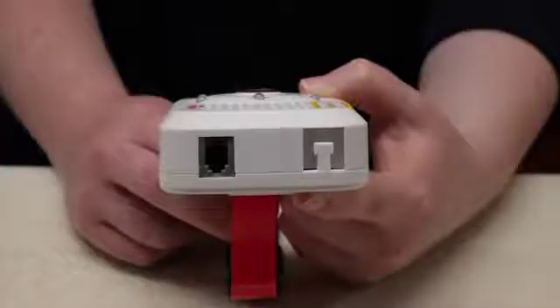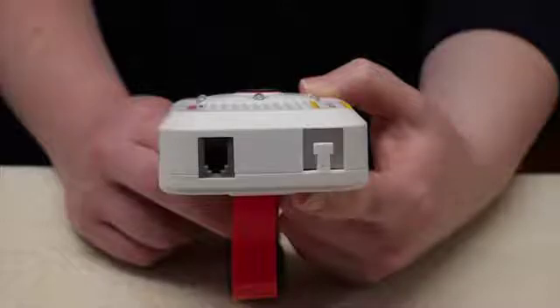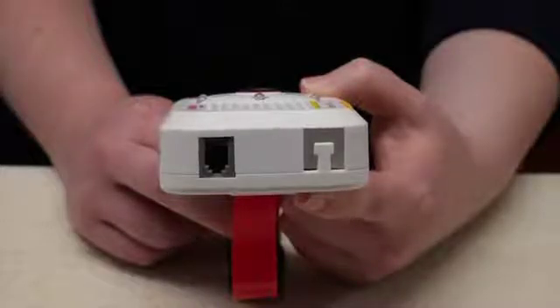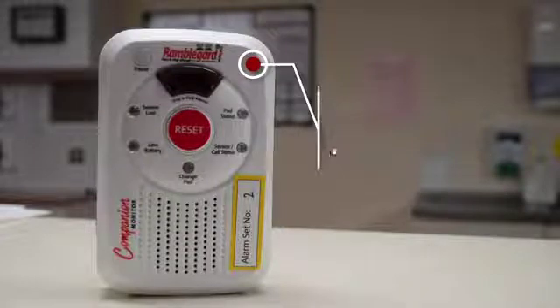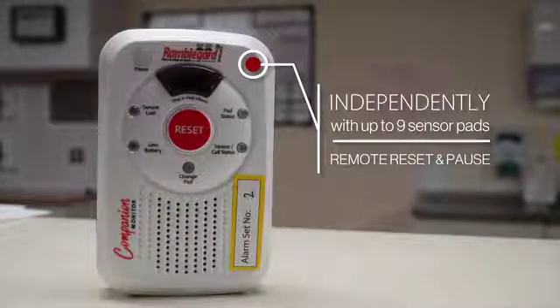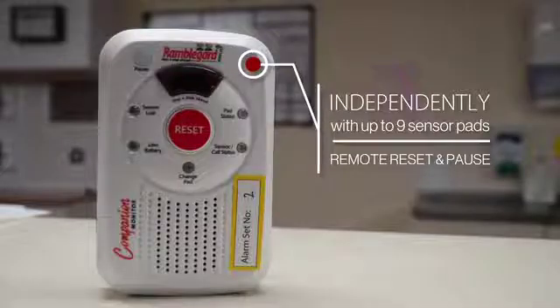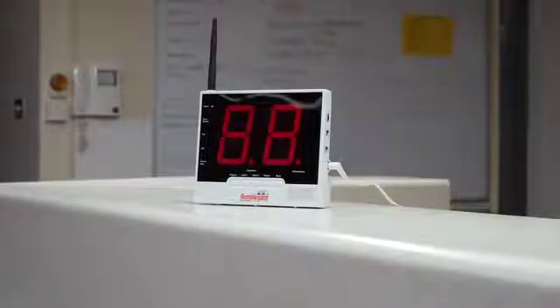On the base of the companion, there is a wired sensor pad connection socket and a strain relief loop point. You should also be aware that the companion can operate independently with up to 9 sensor pads or act as a remote reset and pause by the bedside along with the wireless display panel.